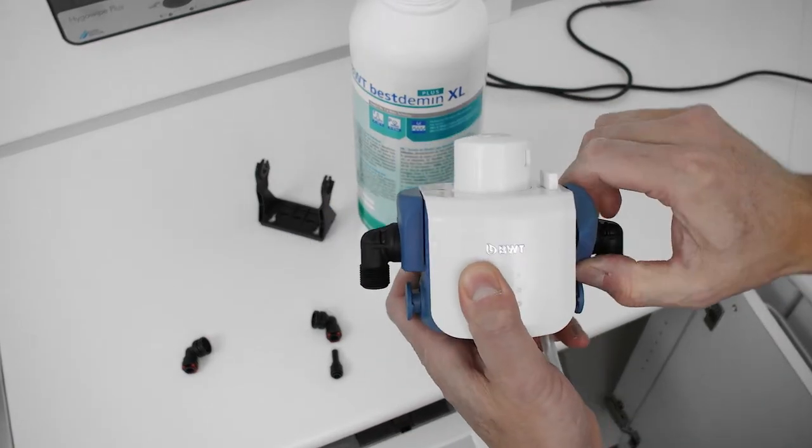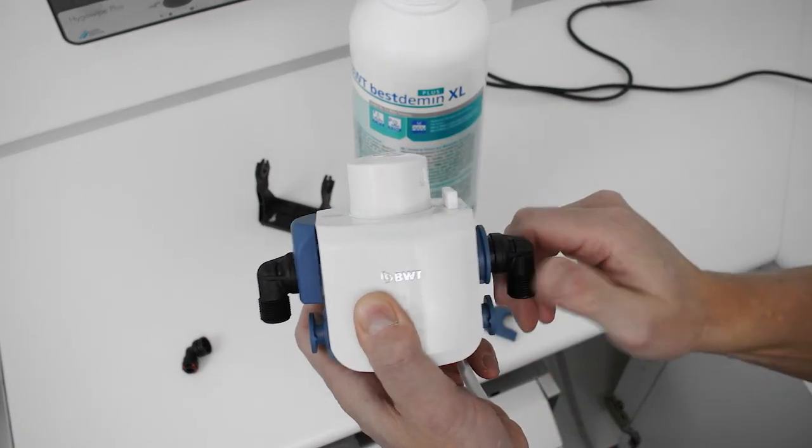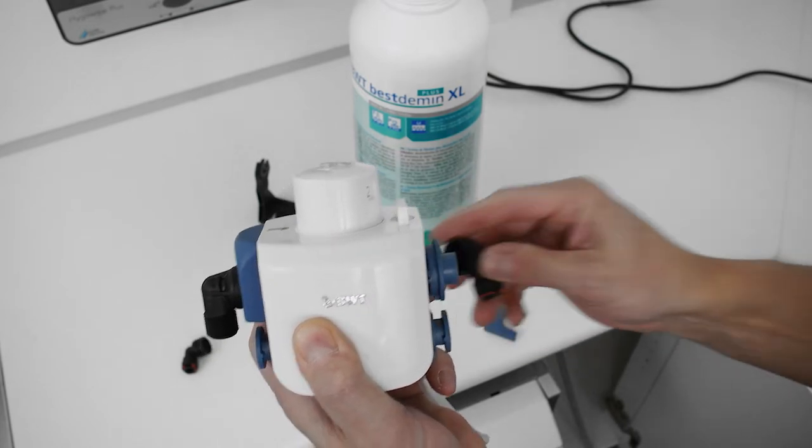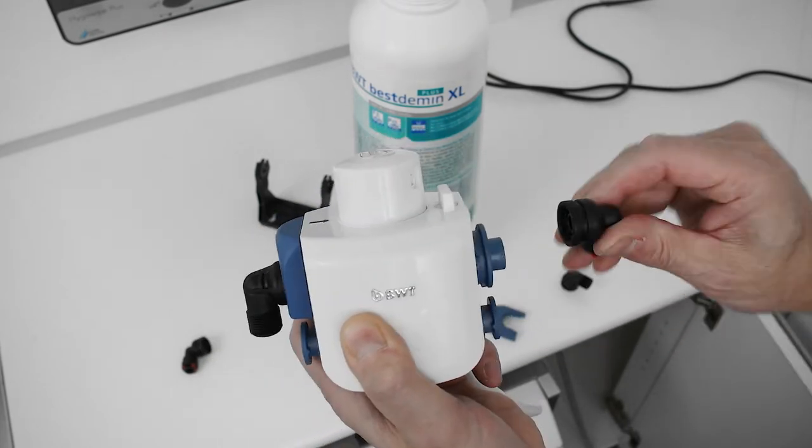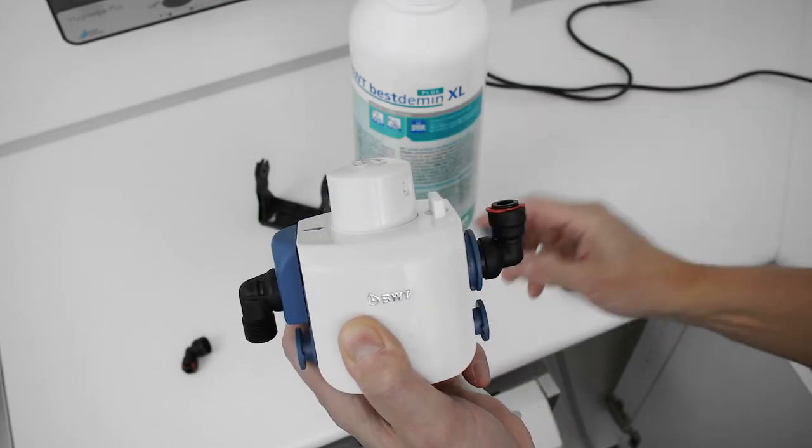Replace both of the connectors on the white filter head with the plastic fittings provided. Note that the connectors are adjustable. You will hear a click once the parts are correctly in place.